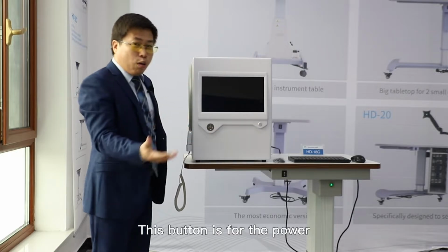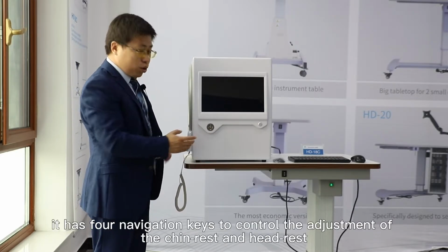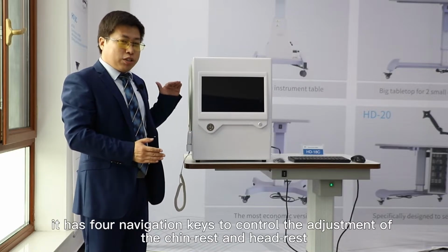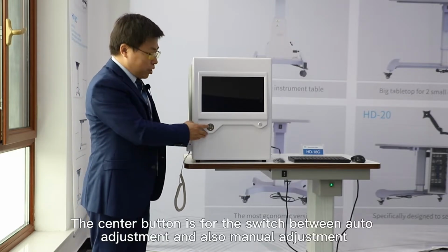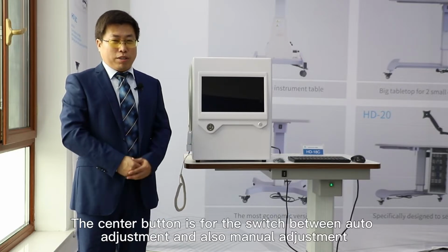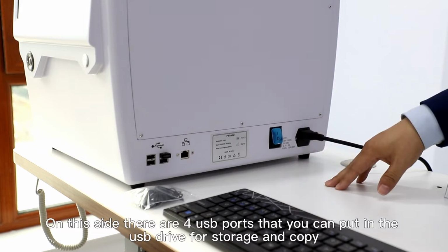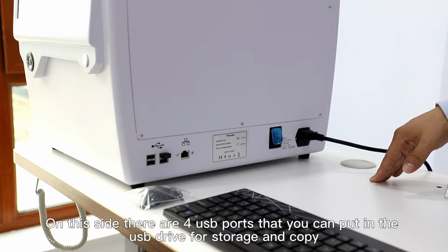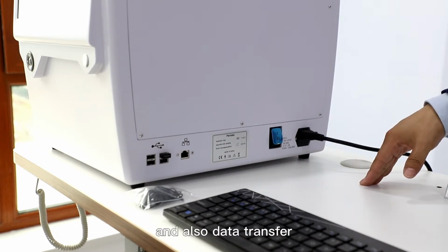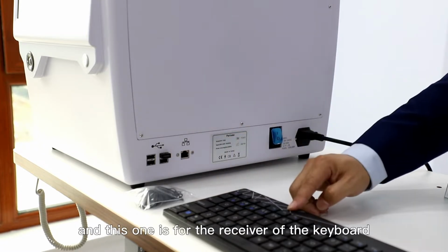This button is for the power, and this button has 4 navigation keys to control the adjustment of the chin rest and headrest. The center button is for switching between auto adjustment and manual adjustment. On this side, there are 4 USB ports where you can put in a USB drive for storage, copying, and data transfer. And this one is for the receiver of the keyboard.